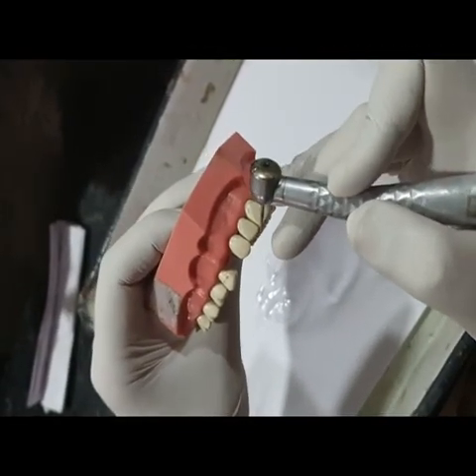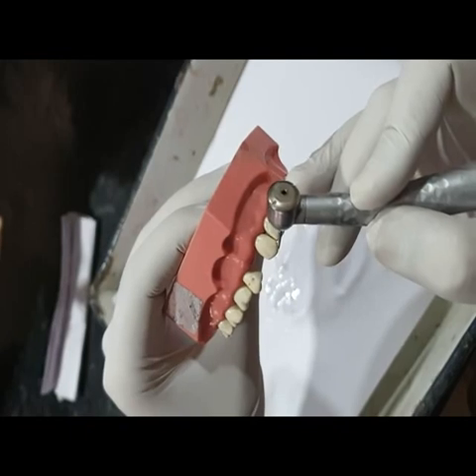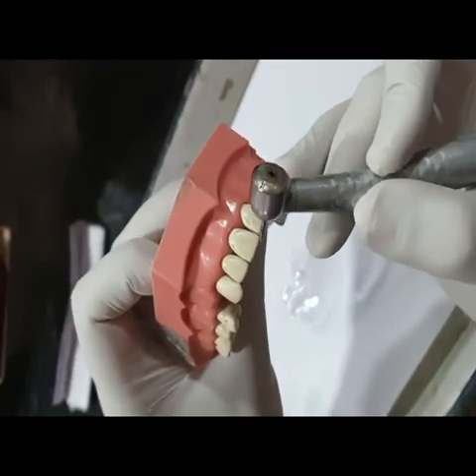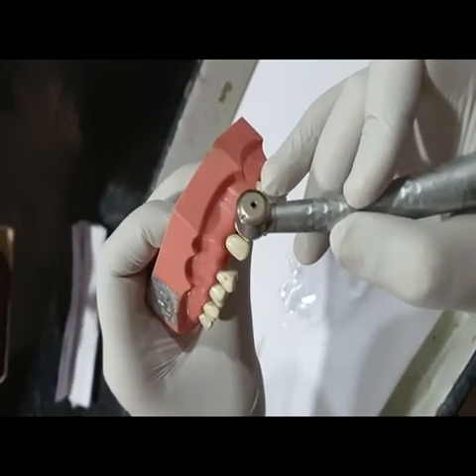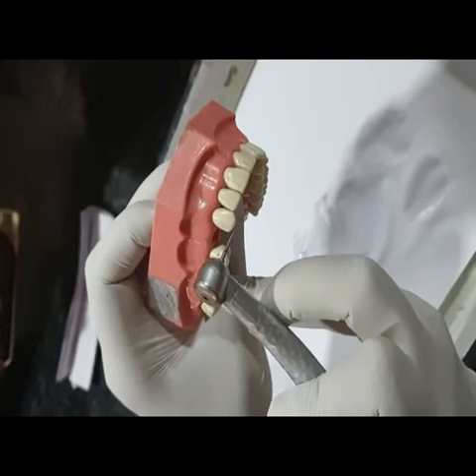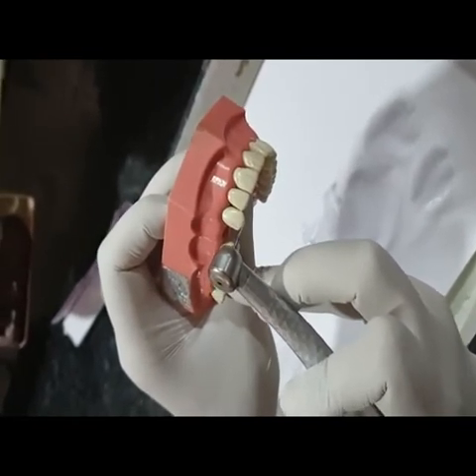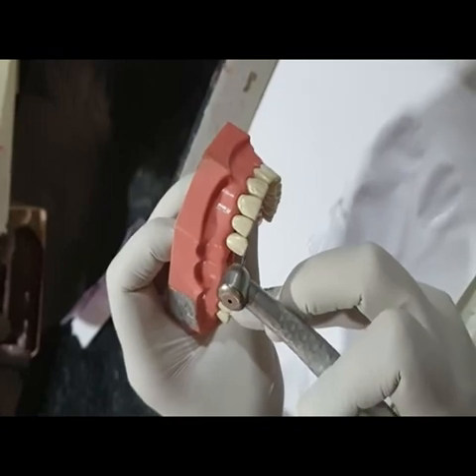Now, coming to the preparation of the maxillary canine on the typodont teeth set. As I was telling you earlier, the incisal edge of a maxillary canine is not a flat plane as is the case with the incisal edge of a maxillary central incisor — it is divided into two slopes: mesial slope and distal slope. The distal slope is longer. So once we complete the incisal reduction, the distal slope of the prepared tooth should be slightly longer than the mesial slope.